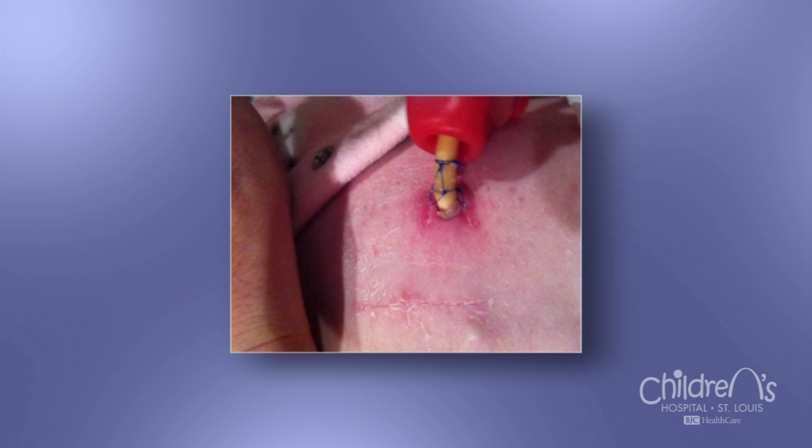Later, in your child's postoperative recovery, sutures around the appliance will be removed. This usually causes very little pain. Sometimes the stitches can come loose or detached prior to being ready to be removed by the surgery team. If this happens, please call the surgery office.